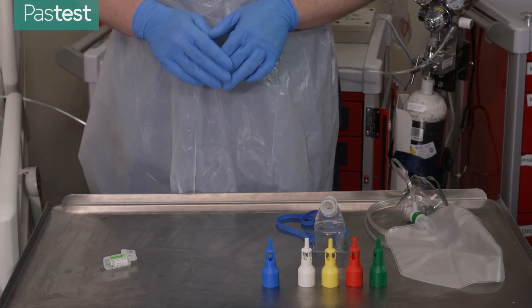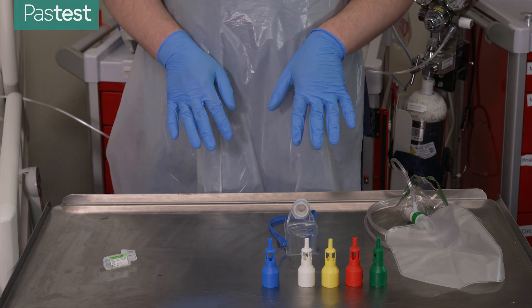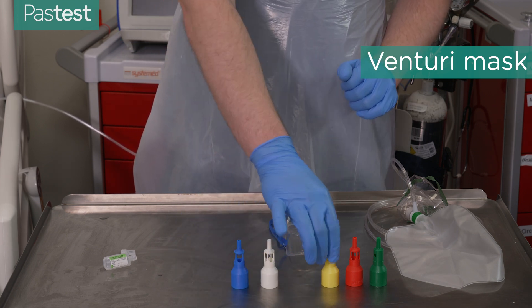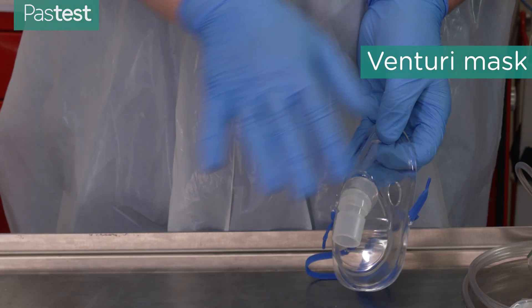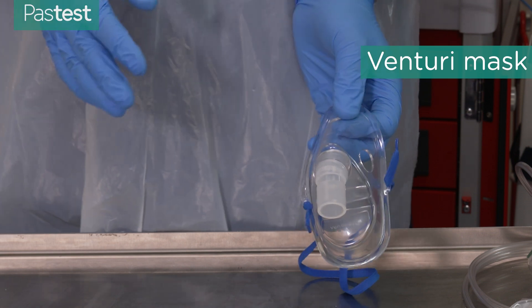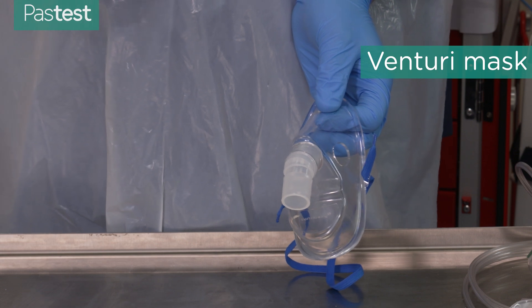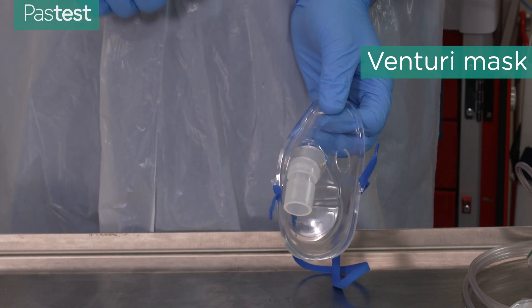The next oxygen delivery device is the Venturi mask — these are attachments that go onto a simple mask and give you precise control over the flow rates and oxygen concentration delivered to the patient. This can be really useful in situations such as patients who retain CO2 with COPD.